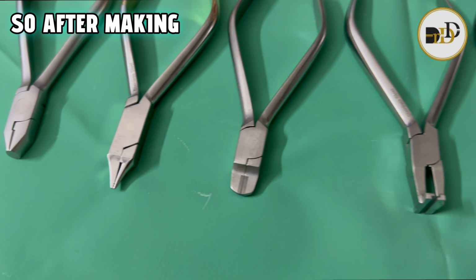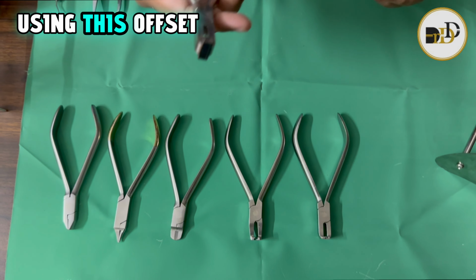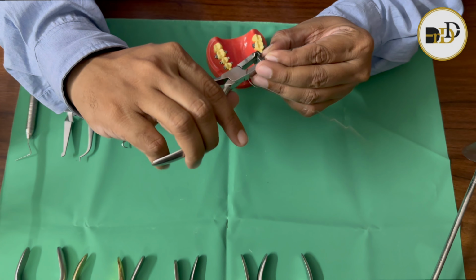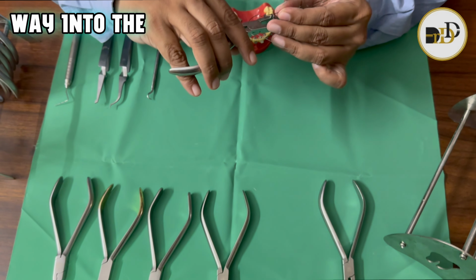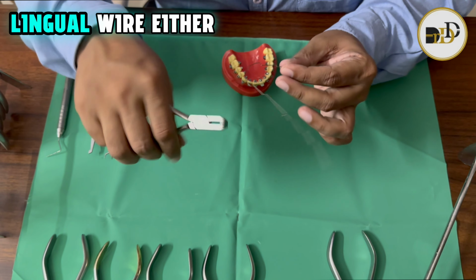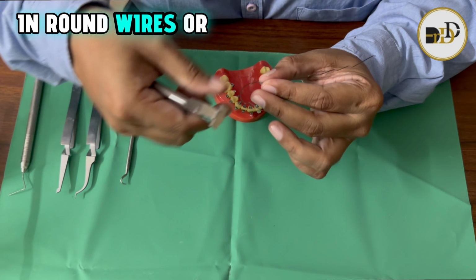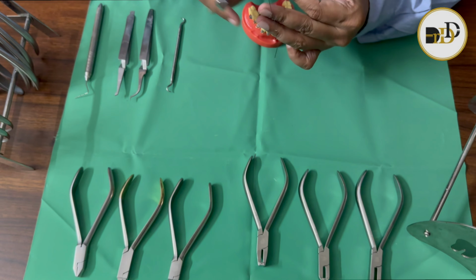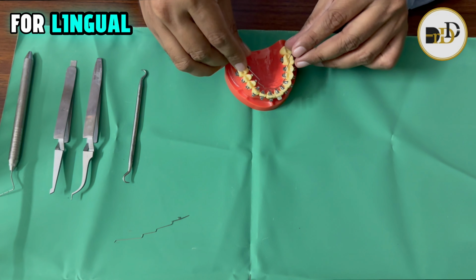After making the lingual form using these offset bending pliers, we can incorporate bends as required into the lingual wire, either in round wires or in rectangular wires, for making the fit for lingual purposes.